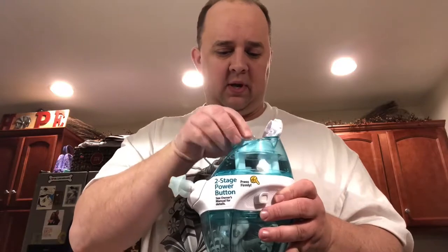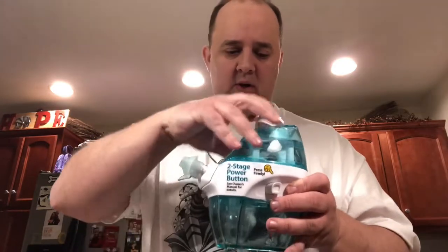You do need the pod — that's how it will come. I'll show you how to take it apart afterwards. You also need the pod; it will not work without the pod, which is basically a salt solution. What you do is pop your lid up — there is a fill line. I take my microwaved water, heat it up, and put it in there very close to the top of the line, because you are going to add your solution. Put that in — it can really only go one way — and close it. Once you close that, it activates.